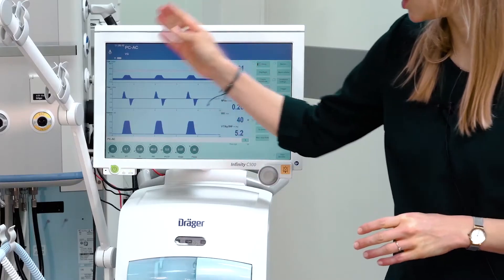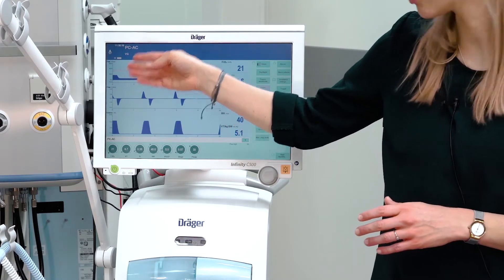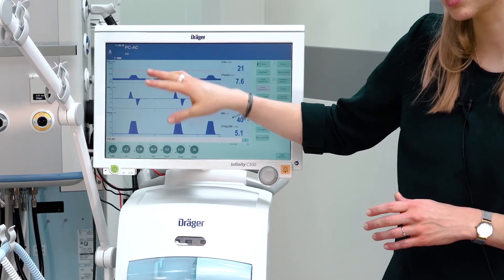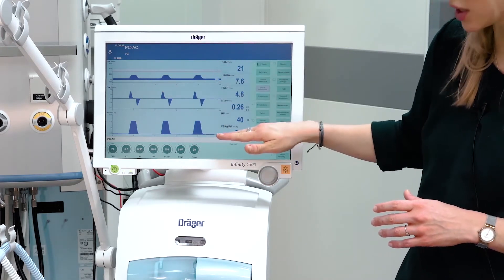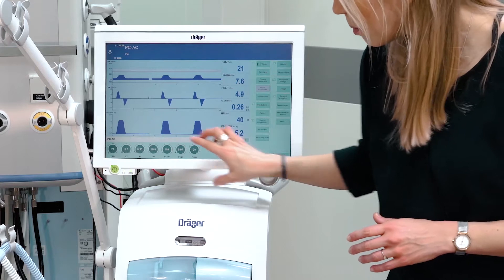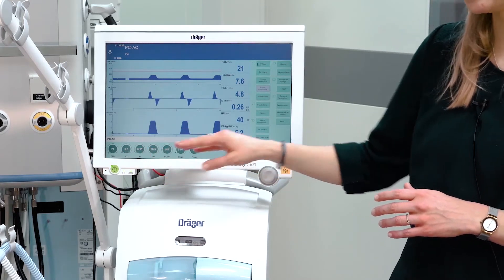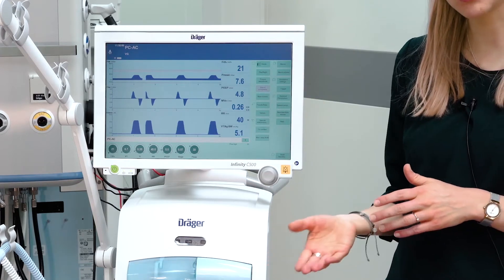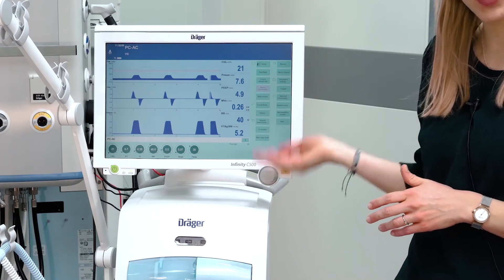The screen is structured as follows. In the upper part you can find the indicators for your respective patient category, the ventilation mode and its additional settings. Centrally you can find the waveforms and respective measurements. In the lower part you can set the setting controls for your ventilation mode. On the right hand side you can enter further submenu structures and you can find configurable function keys.